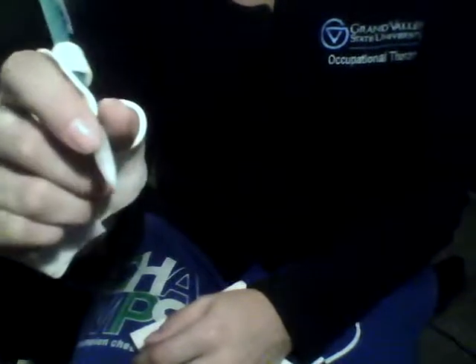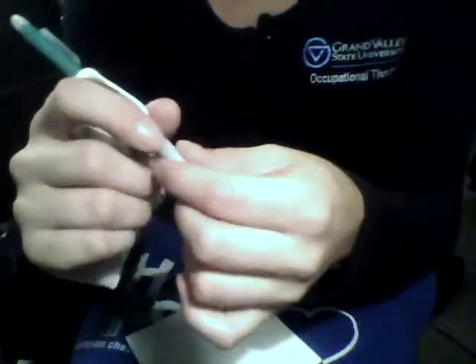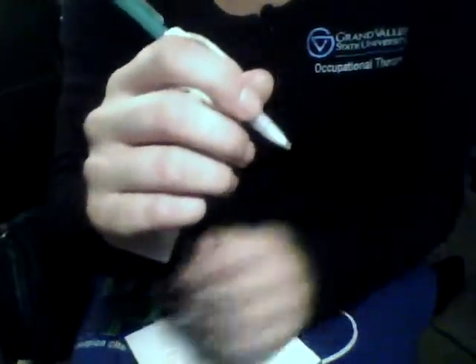You can use it as a pen to write like that. It's very supportive on the top of the hand and also curves around the palm. It's important to note that it's below the distal palmar crease for added comfort and security with these two digits. You also have the sensation of your fingertip and your thumb to feel the pen to make sure that you're writing correctly.